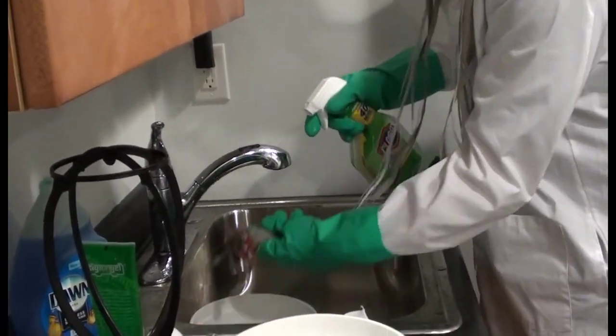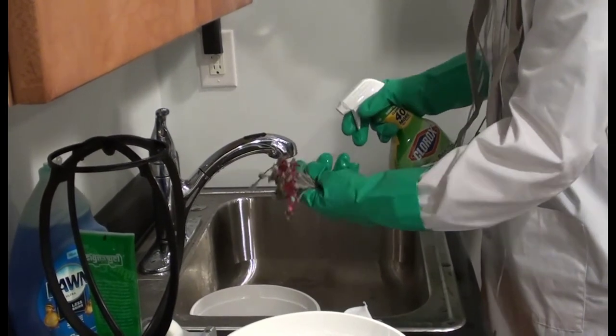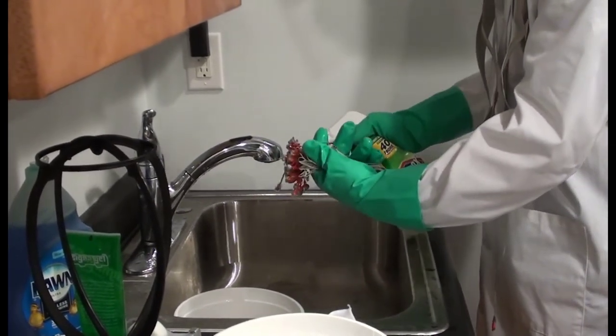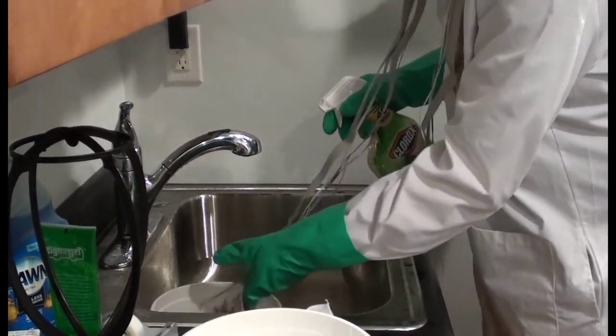Also, consider that every disinfectant has a prescribed kill time for each pathogen for which it has been tested, so be sure to leave the disinfectant on the cap and electrodes long enough to meet the minimum requirements for the pathogens of concern.